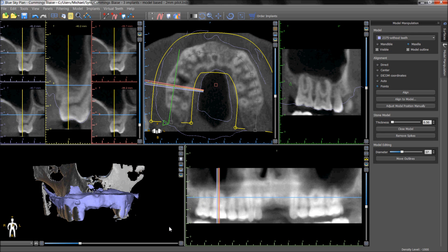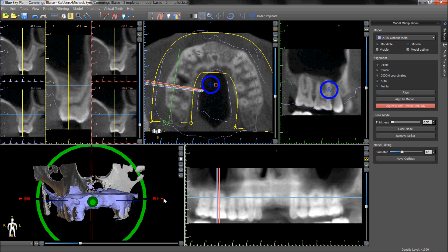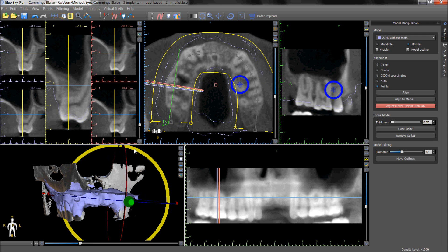The model position can also be updated manually by clicking on adjust model position manually. The model can be moved by using the large arrows or rotated using the widget which now appears around the model. The model placement can also be controlled by clicking on the blue circle representing the axle of rotation. The arrows on the keyboard will now allow fine refinement of the model positioning. The axle of rotation can also be modified by grabbing the small arrows and repositioning the axle of rotation. Now when the model is rotated, it will be rotated around the new axle position and not the center of the model.